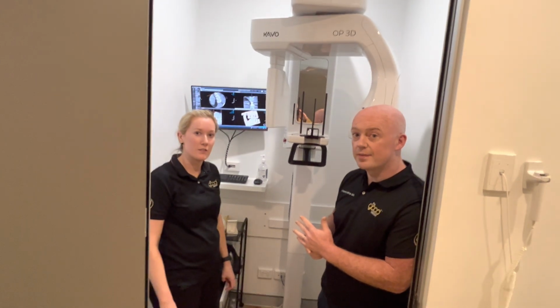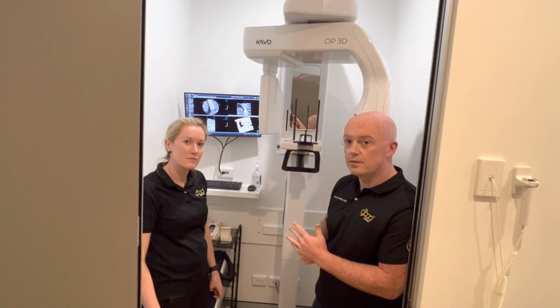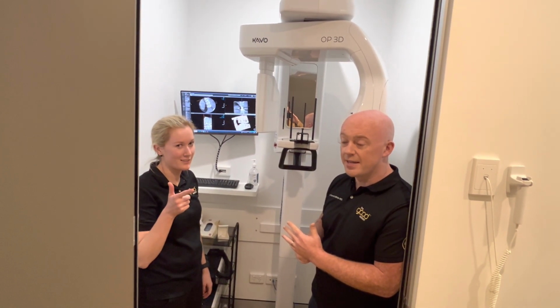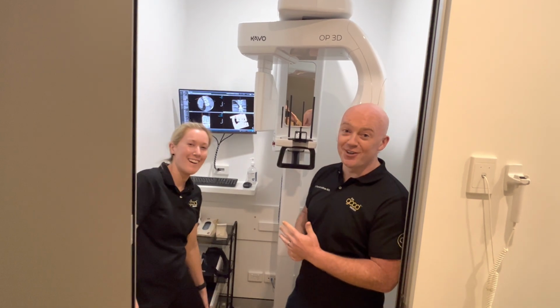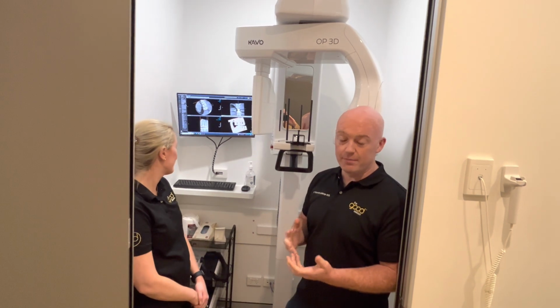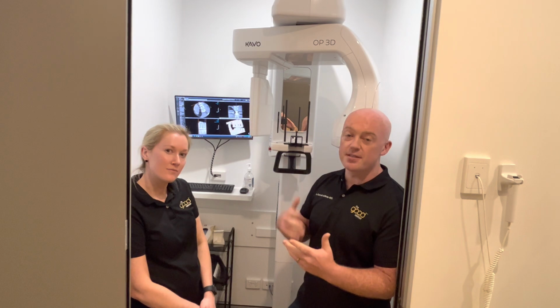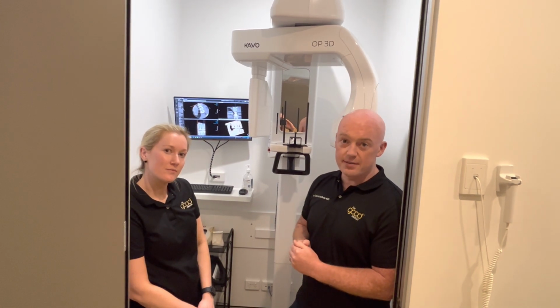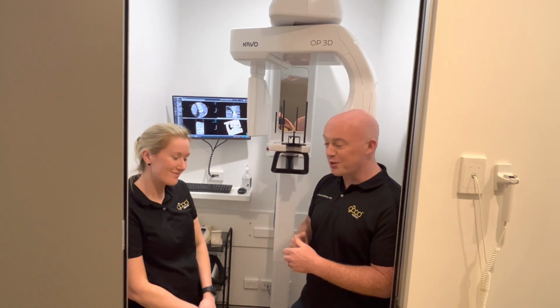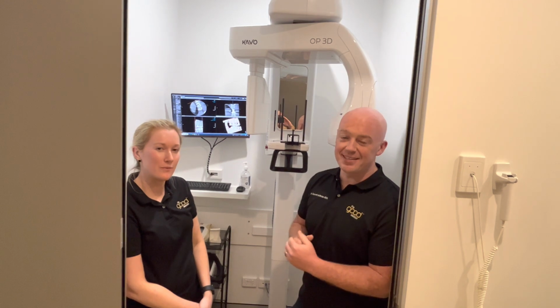Yeah, really easy. Because I really think that's a big part of the whole package, is the software, because if the software is not easy to use, it's going to be... And the support. It's the support. It's Steve Cross, Sean. Yeah. To be honest, and Olivier. Whenever we were looking at other options back in the day, there was no one to really truly train us and help get our license together. Steve was unbelievable. Olivier's on speed dial on both of our phones. He's straight in there fixing any problems. So yeah, it's a no-brainer.